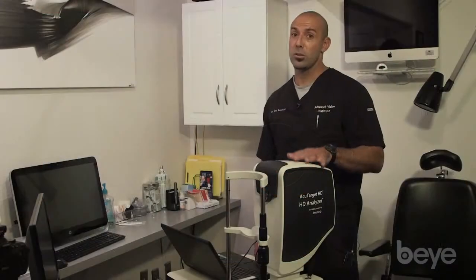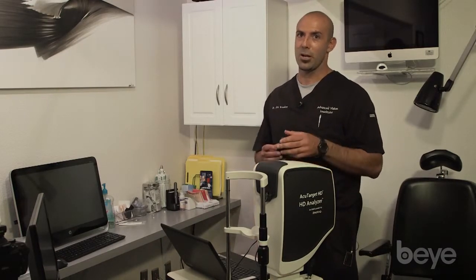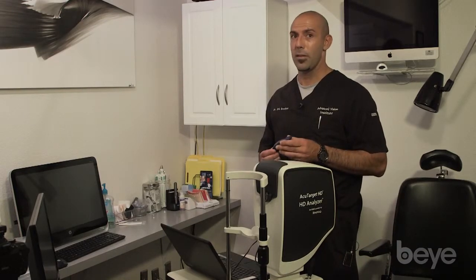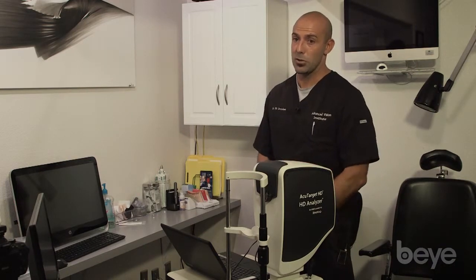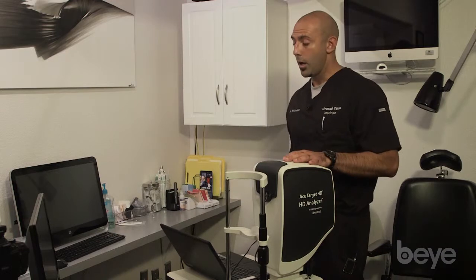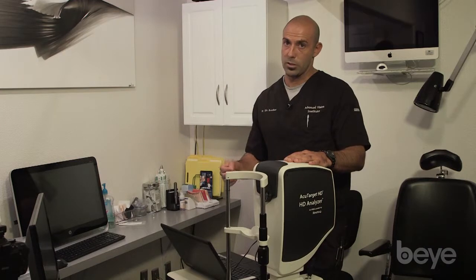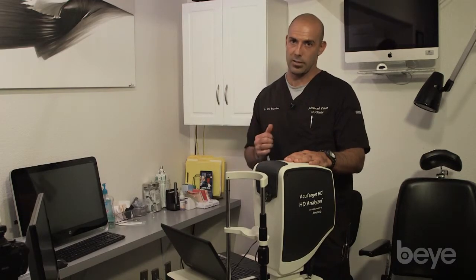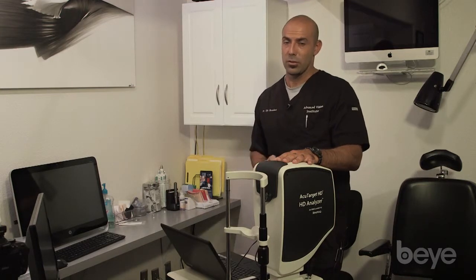patient. So although there's a lot of advantages to this instrumentation, there are a couple of cons. One is that the instrumentation does not come with a hands-free mouse, and I highly recommend that your staff goes out and buys a mouse to use with the instrument as we have here. It makes measuring the patients a lot more quickly. Secondly, when your staff is printing out the individual evaluations, it doesn't print out all the evaluations all at one time. You in fact have to print out each measurement individually for the different types of scans that you did. So a nice feature would be able to print them all out all at once. That would make things a little bit more quick and easier to use for the staff.